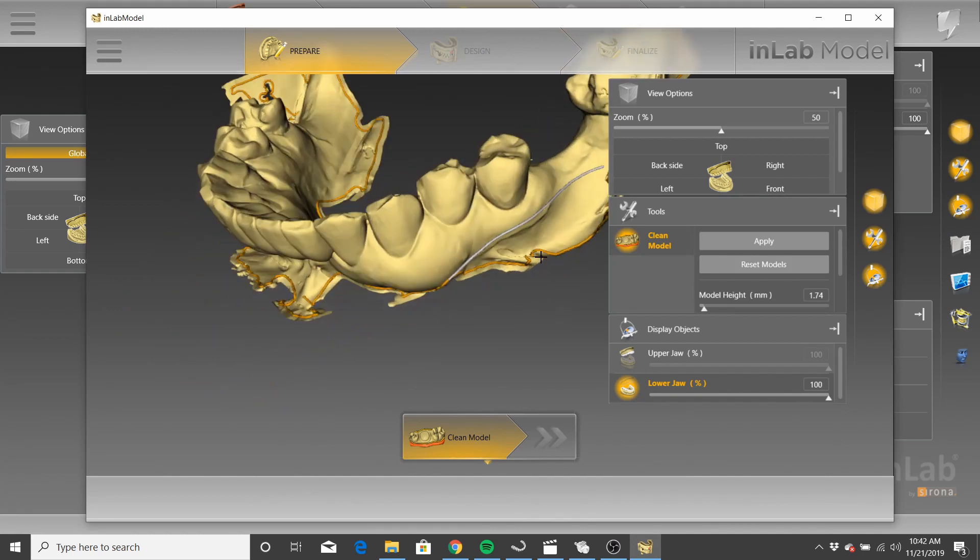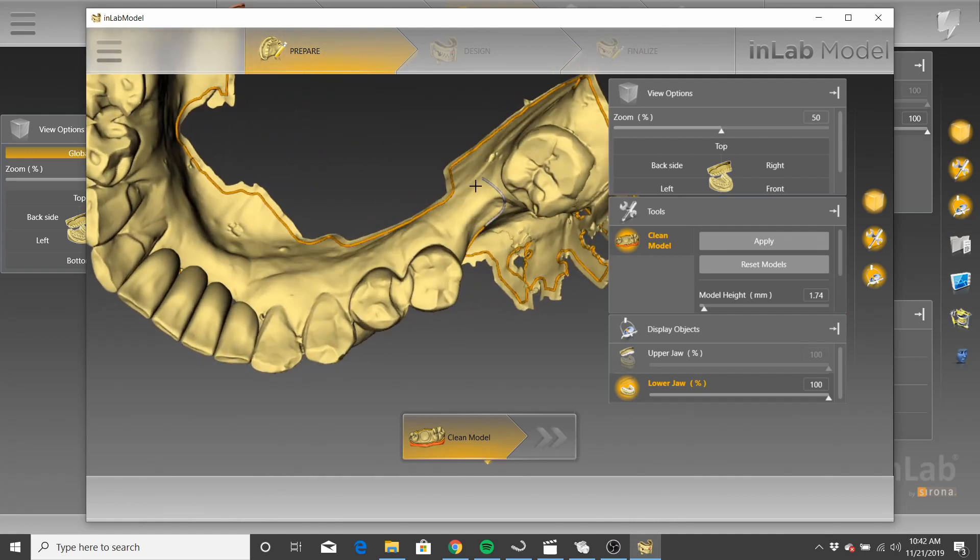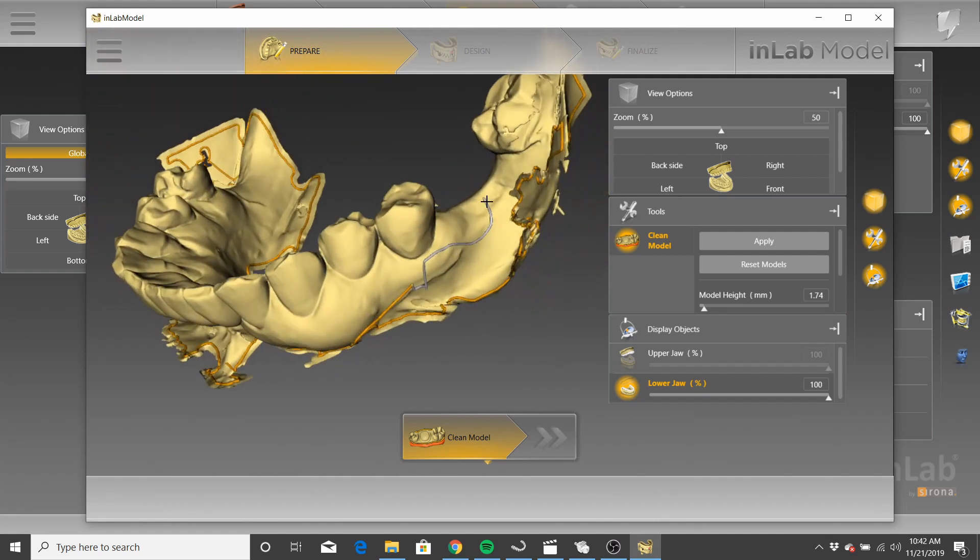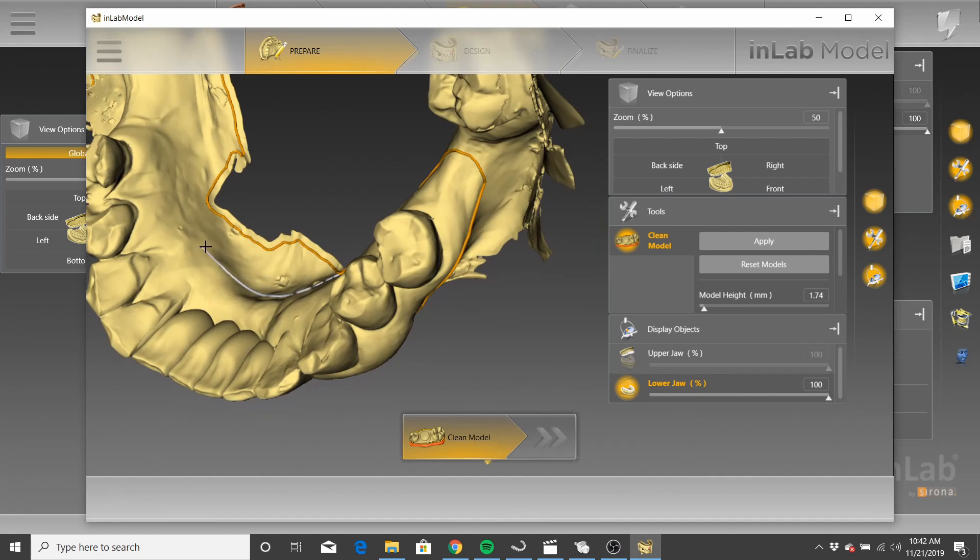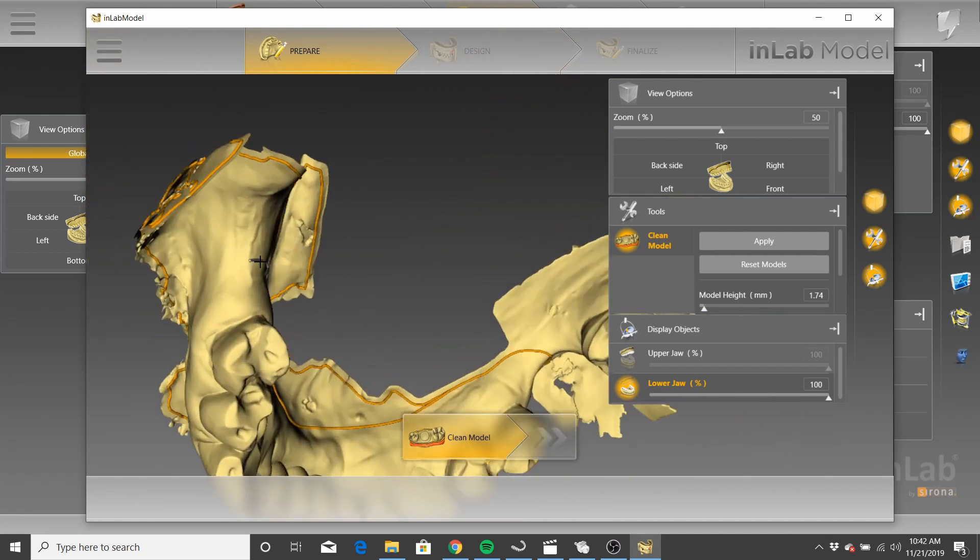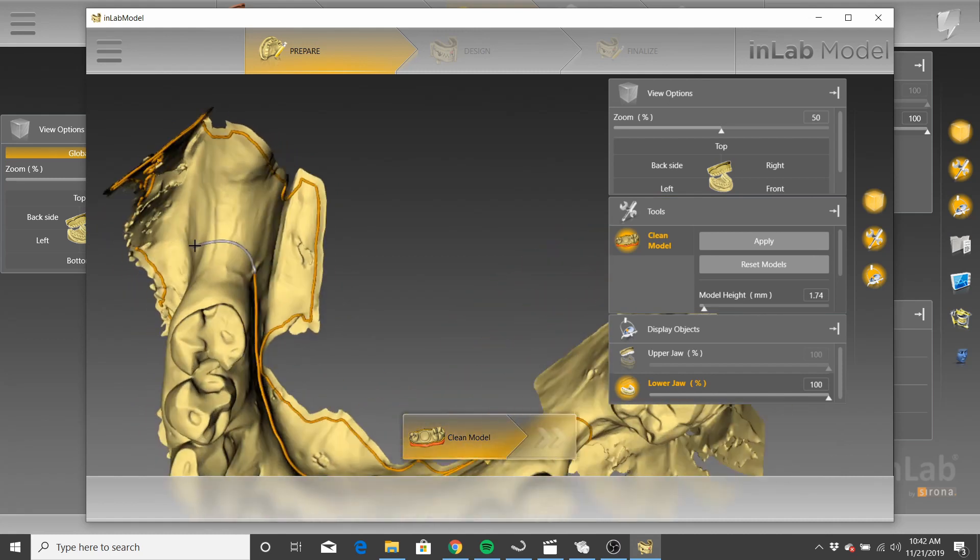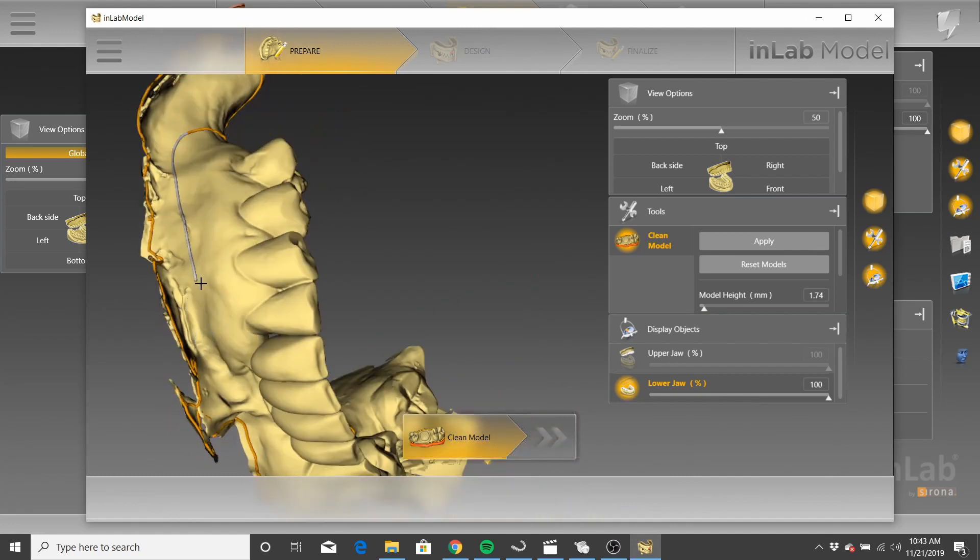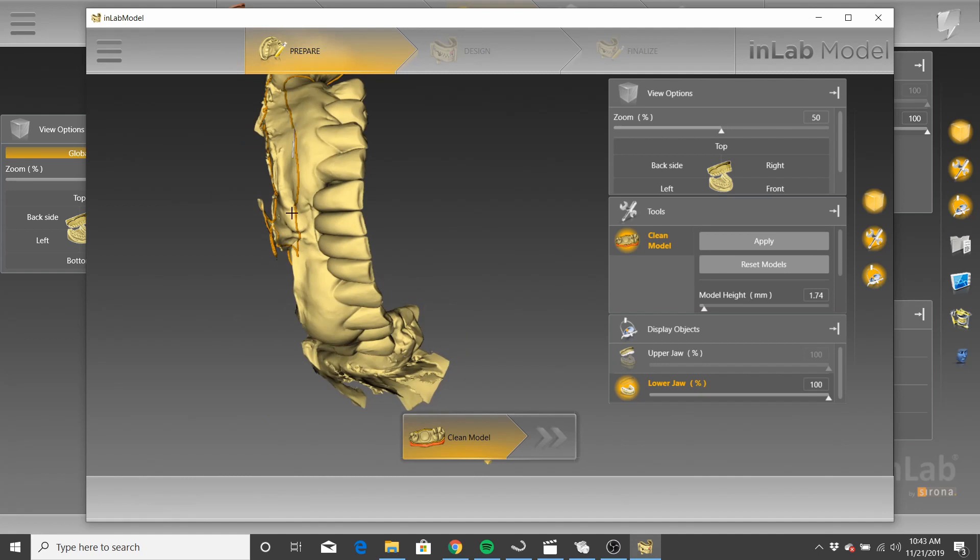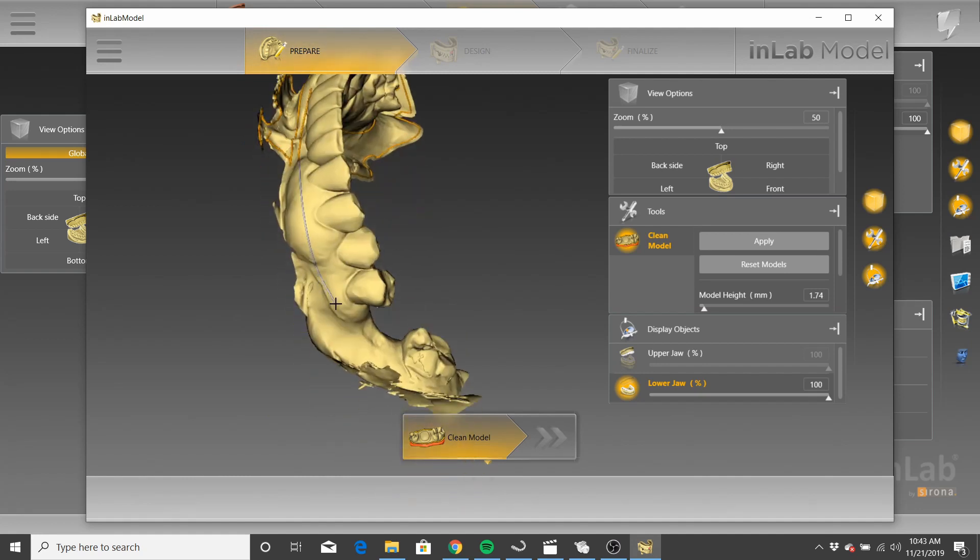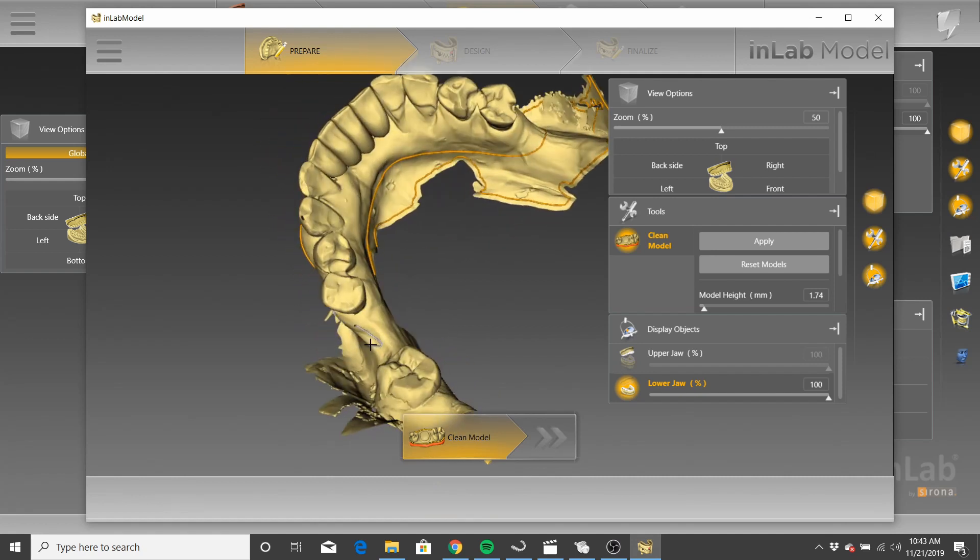You're going to do your cleanup. I'm going to make this really quick because we're going to end up disregarding this file anyways. Even though I'm still a perfectionist. And some of you may know what's about to happen. Some of you may have experienced what's about to happen. And it sucks. But I'm going to show you guys how to fix. This is what we're about to experience. Gosh, are you serious? Are you guys seeing this? Ridiculous.